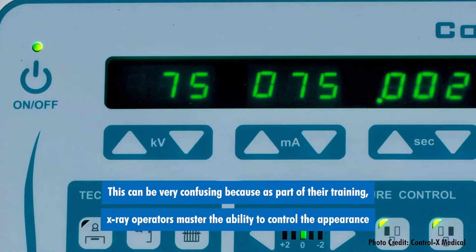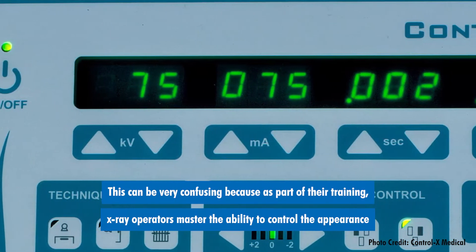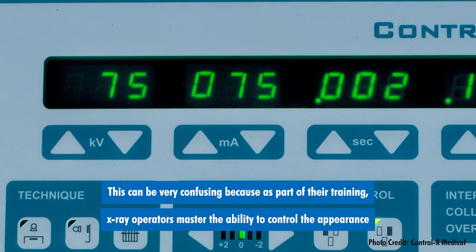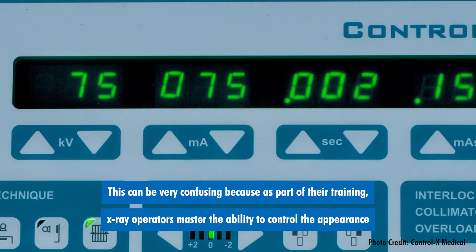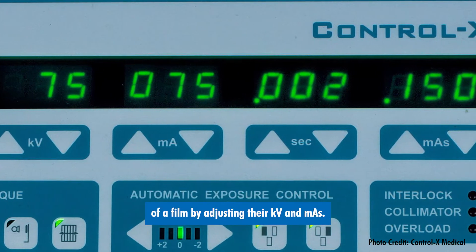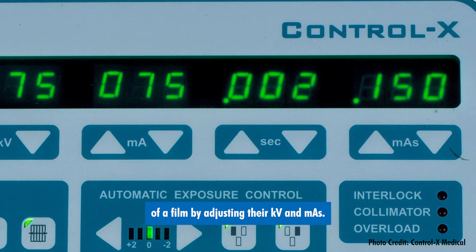This can be very confusing because as a part of their training, x-ray operators master the ability to control the appearance of a film by adjusting their KV and mAs.